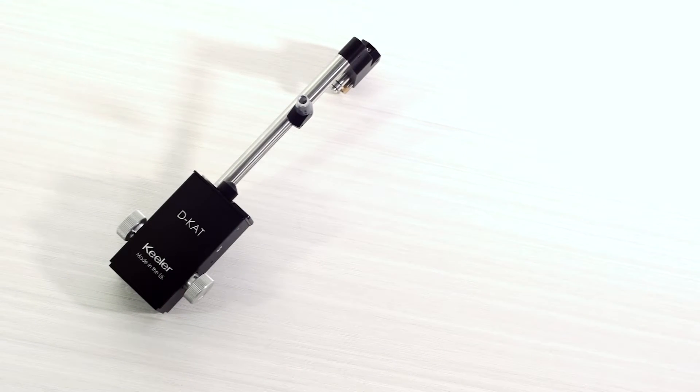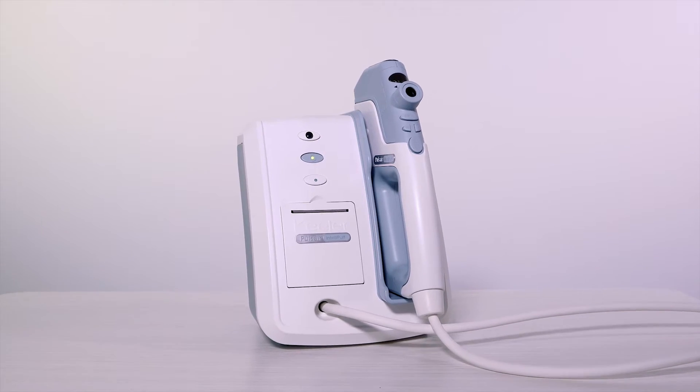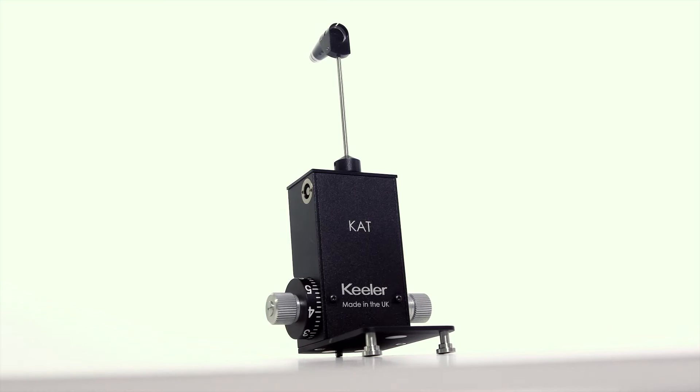Keeler offers a line of tonometers, both non-contact and contact, that deliver consistent and accurate readings.